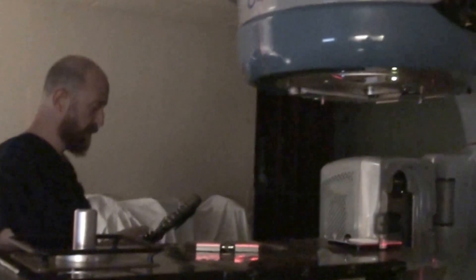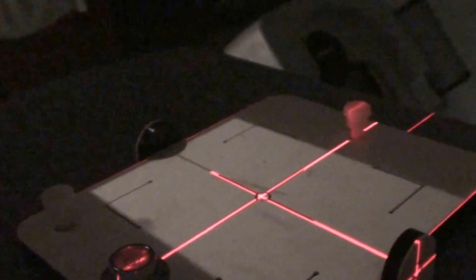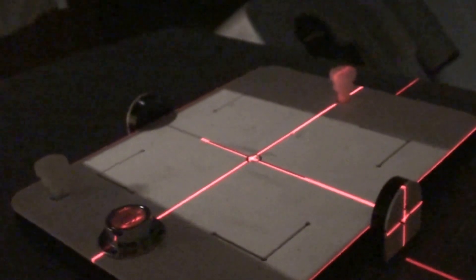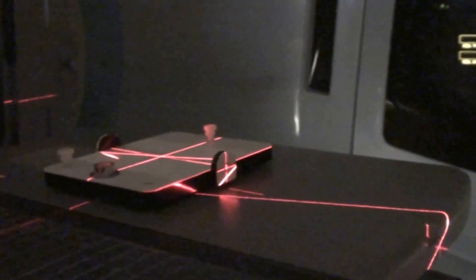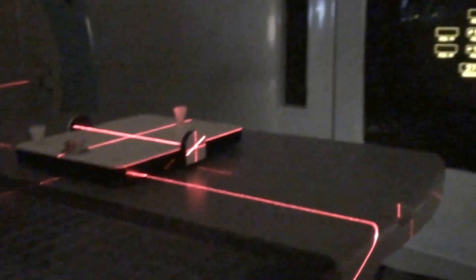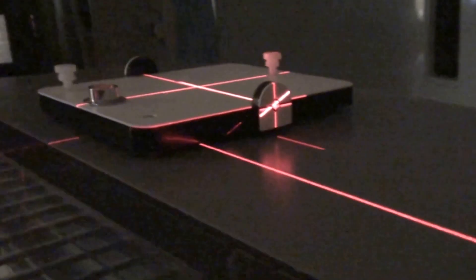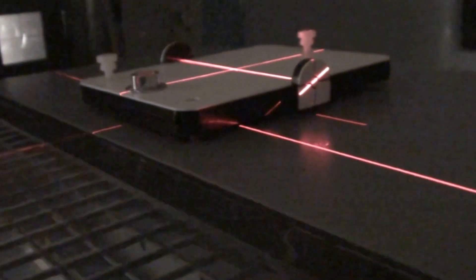The last thing I normally check is the overhead laser. Just move the gantry out of the way and let the overhead laser shine on the white box — and sure enough, that's great as well. One can also check the back pointer laser. On my particular unit there are actually two back pointer lasers. You can see one coming into play right now as I go over 270. I'm hiding it and now it's back — that's the back pointer laser. It is also within tolerance.